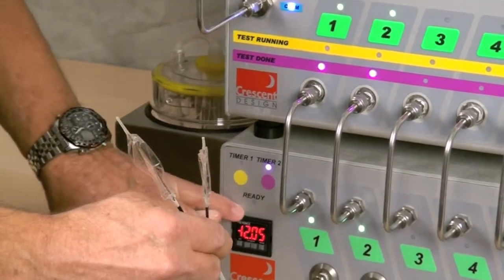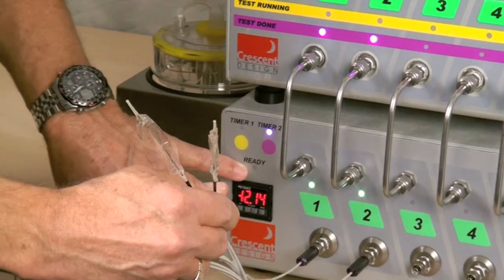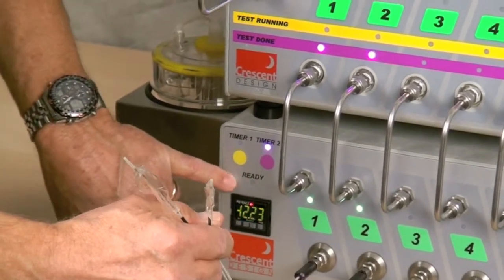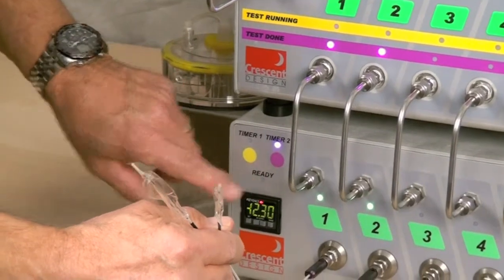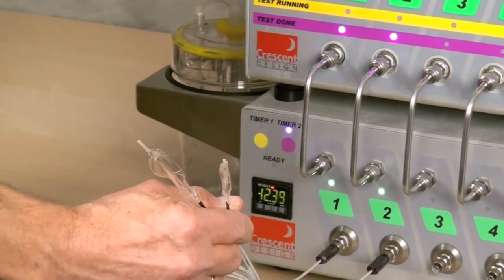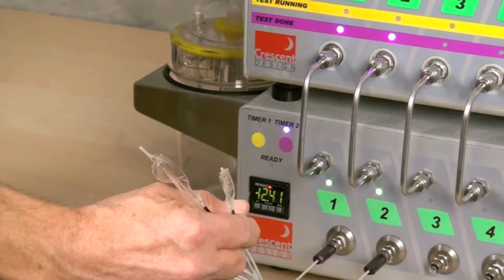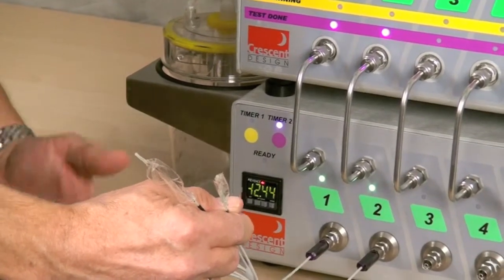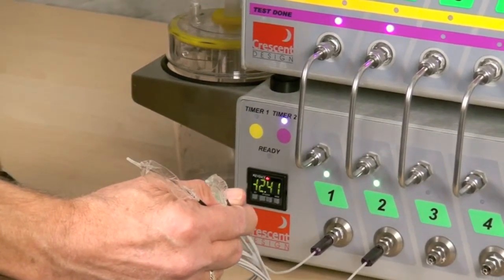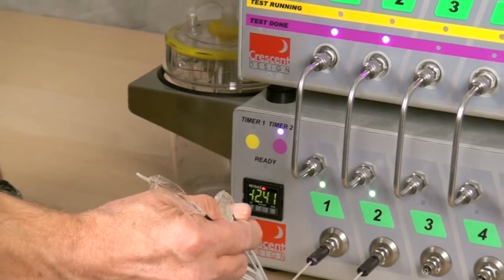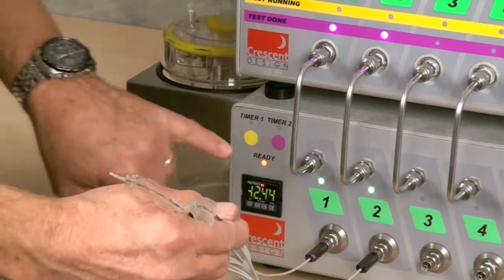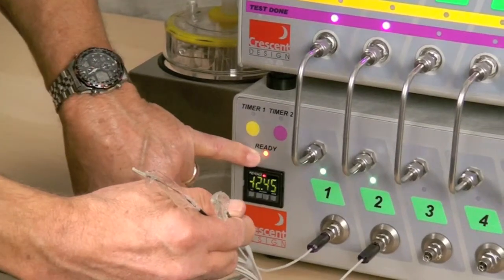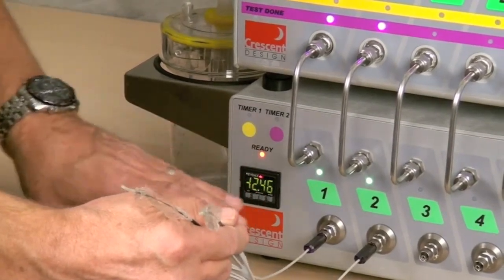And the catheters are being completely evacuated. And we'll wait until this ready light comes on, which is just above the timer, or the sensor, I should say. And that indicates that the timer in the back has cycled off and the unit is ready to continue testing, if you wish. So the timer has cycled off and the unit is now ready for use.